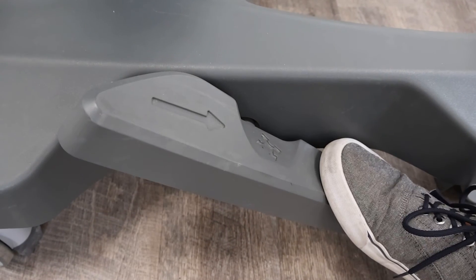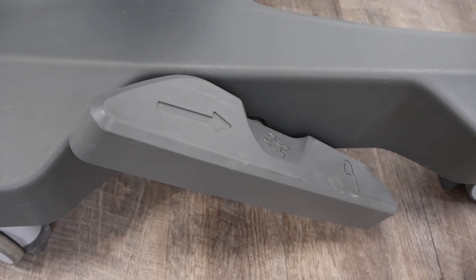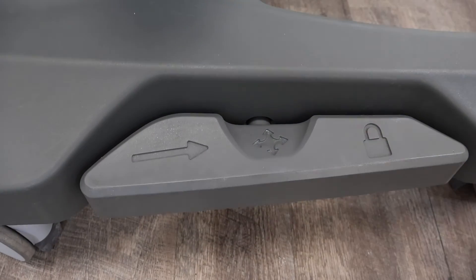The Tau 2020 has a three-way brake control that allows you and your team to maneuver this system with ease down hallways and around corners.